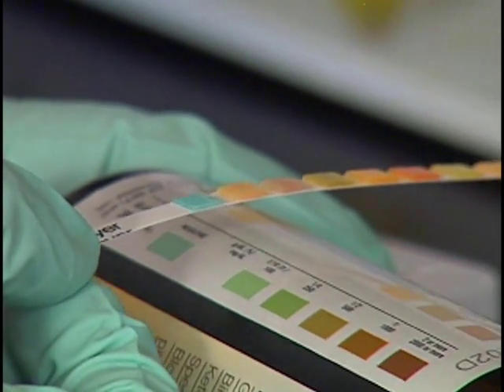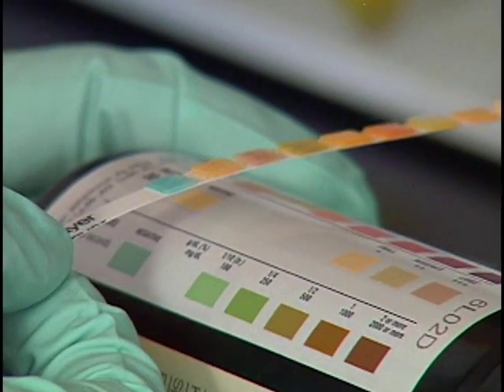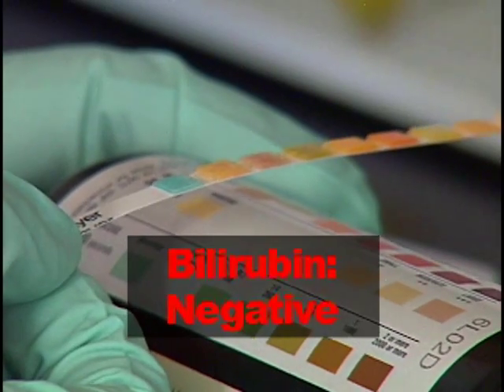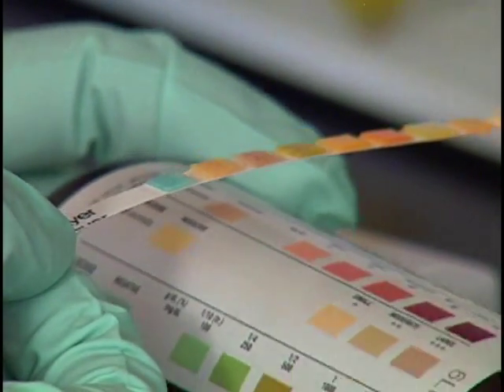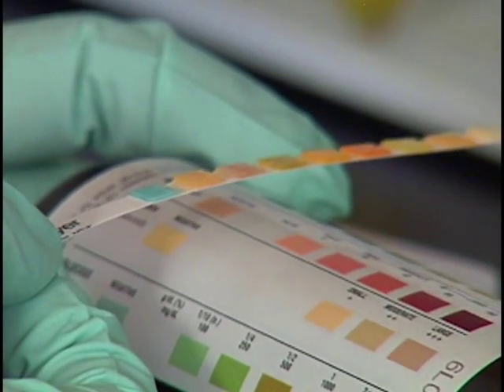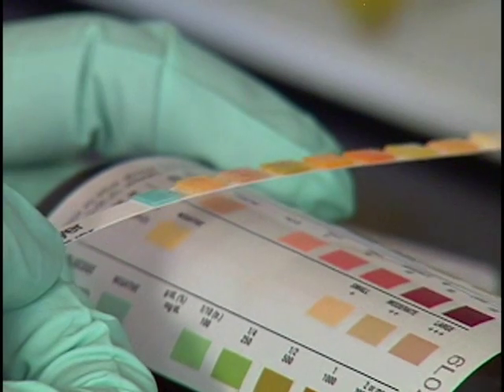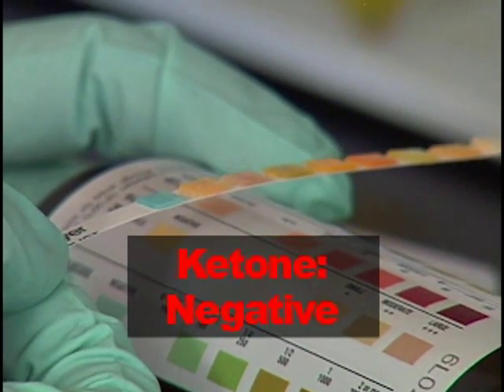Bilirubin is also read at 30 seconds. Carefully match the color of the bilirubin reagent block with its corresponding color on the color chart. The result for bilirubin is negative. Continue reading the test results at the specified times. The ketone result is read at 40 seconds. The result for ketone is negative.